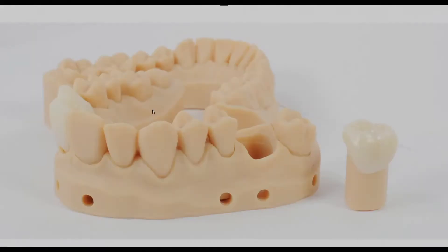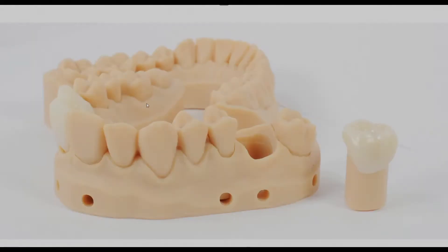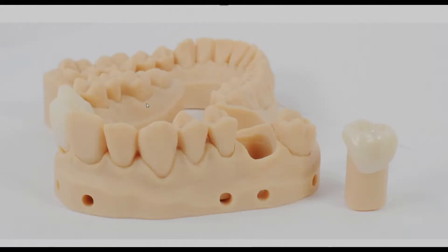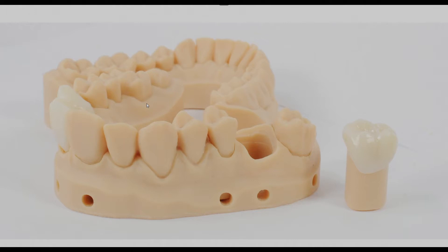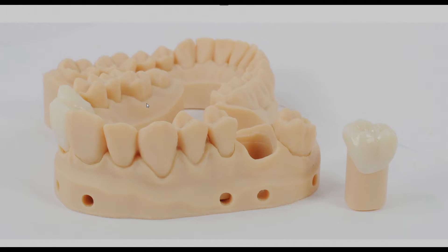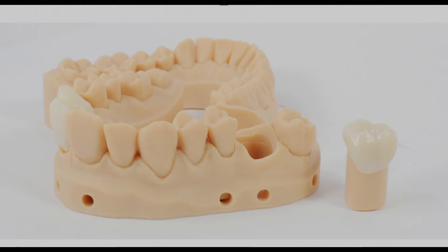If you follow the instructions in this video tutorial, this is how your model is going to look.